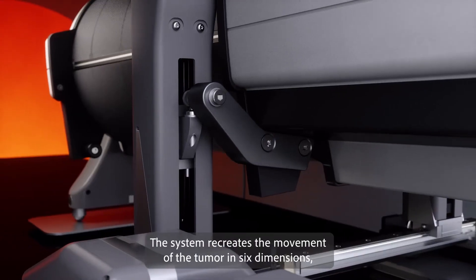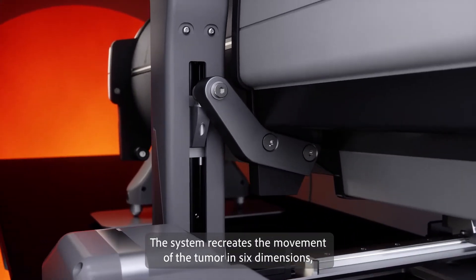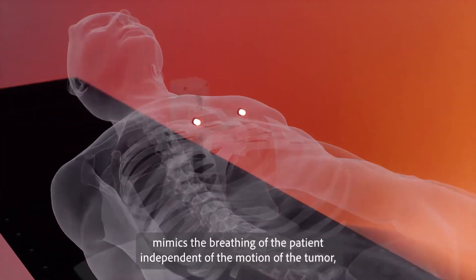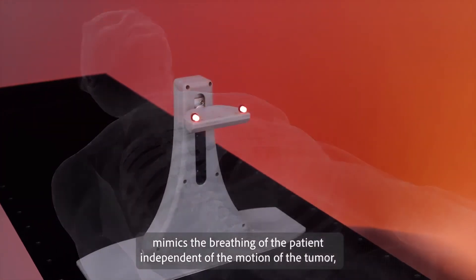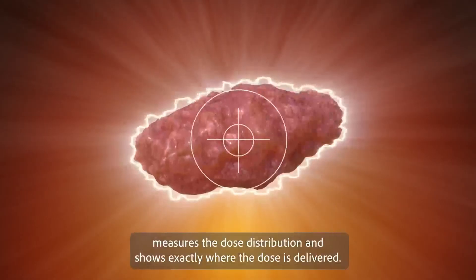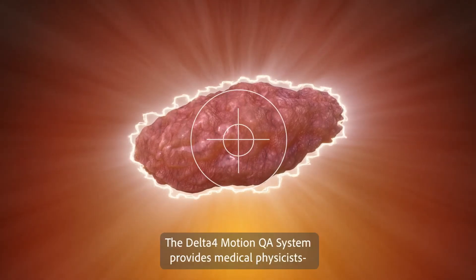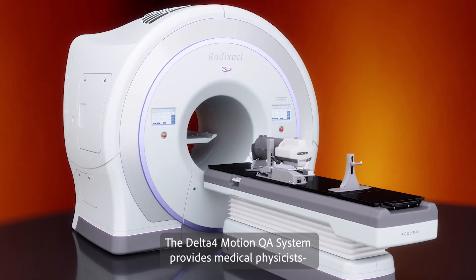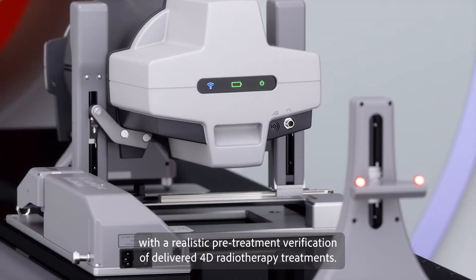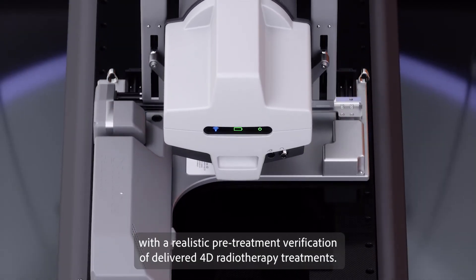The system recreates the movement of the tumor in six dimensions, mimics the breathing of the patient independent of the motion of the tumor, and measures the dose distribution, showing exactly where the dose is delivered. The Delta 4 motion QA system provides medical physicists with realistic pre-treatment verification of delivered 4D radiotherapy treatments.